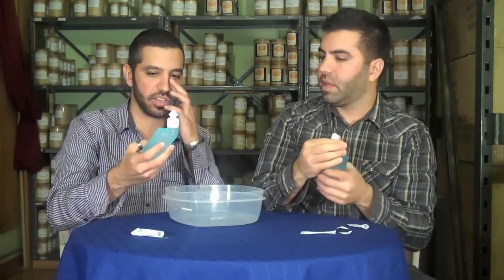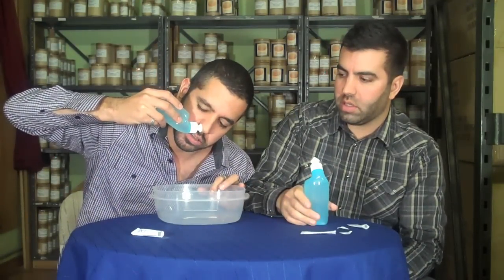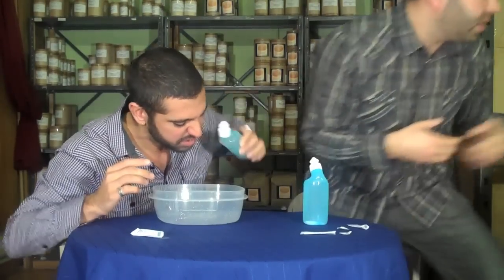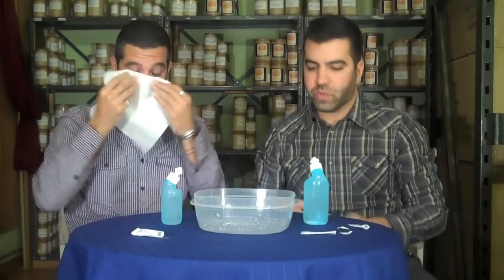I'll show you how easy this is. They have pictures on their website of two-year-olds doing this. It's so simple — you just hold it up until it comes out the other side. And I'm done. That's it.